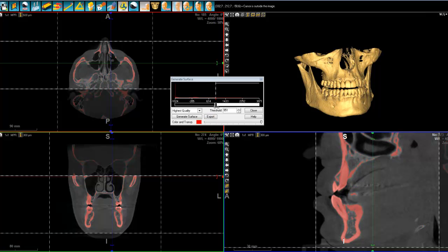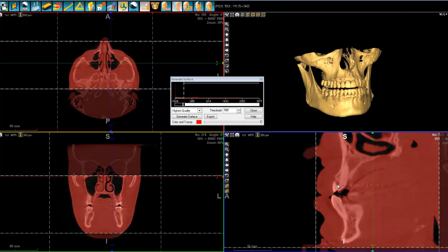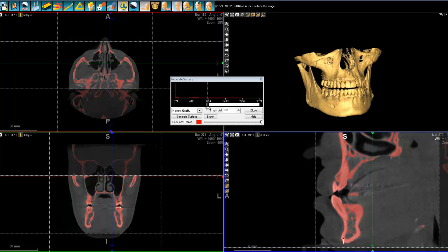If I move the threshold upwards, I'm only selecting the hard tissues, and you can see that I'm already losing some definition — the shape is not going to be that great. Conversely, if I select too much, what you'll end up with is the face of your patient. So there's a little bit of right setting required — you need to select the right setting, like this.